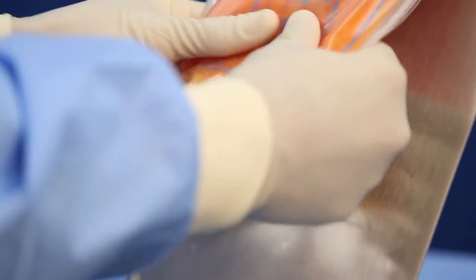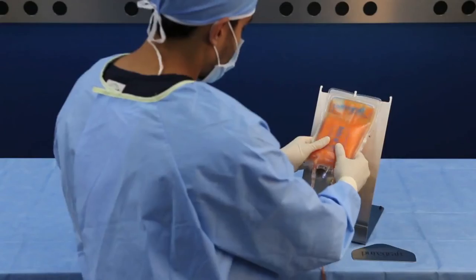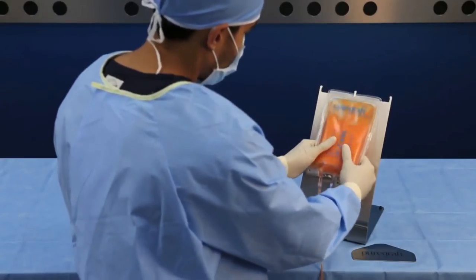Agitate the PureGraft manually for about 15 seconds and ensure that the graft is thoroughly suspended in the lactated Ringer's solution.